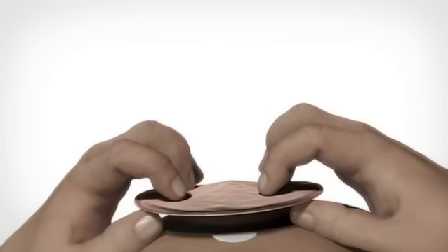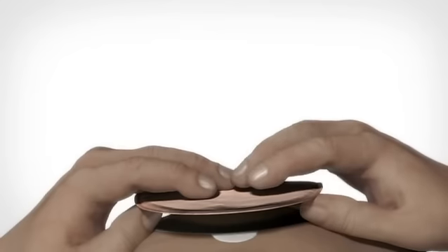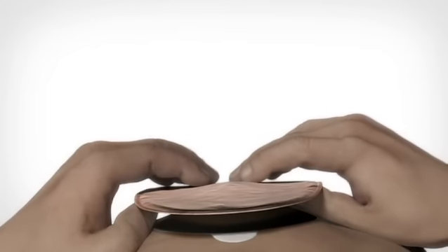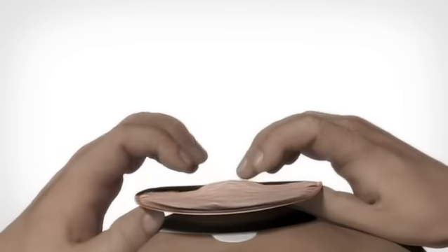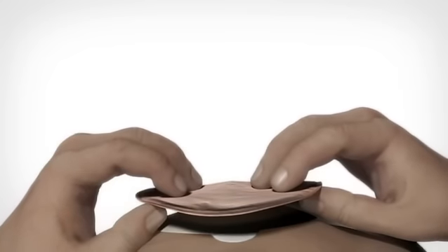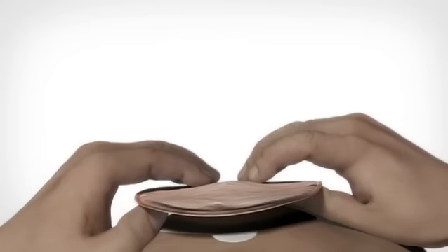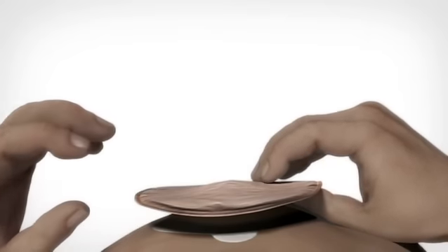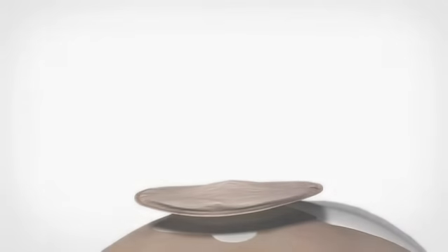Finally, apply light pressure to the bag and base with your fingers to ensure a perfect fit between the base and the bag. If necessary, it's possible to reposition the bag once just after application. Ensure the base is clean if reapplying.